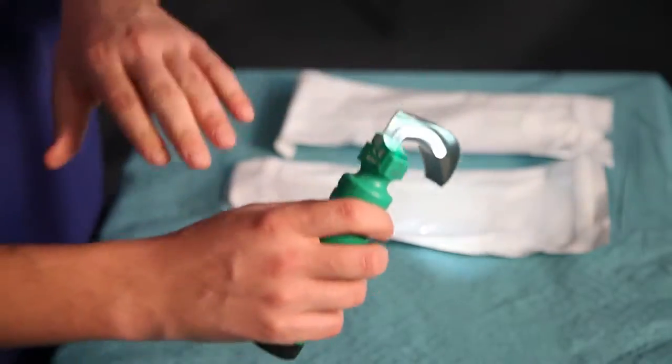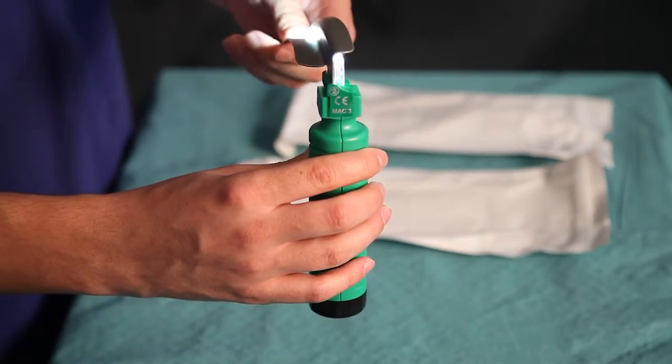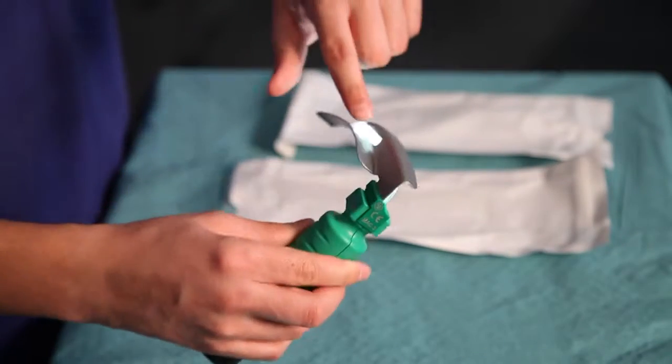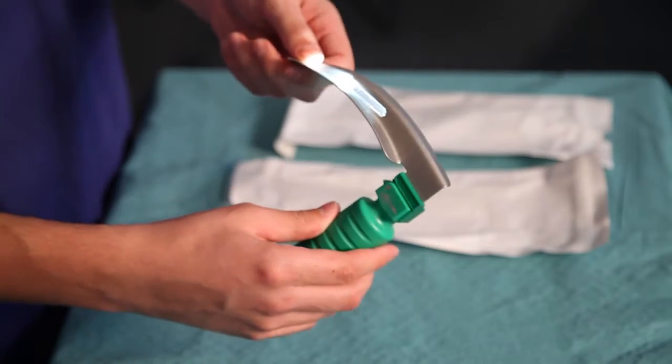The Callisto blade has been redesigned to have a narrow profile. This allows better vision when performing intubation. There's also a new 4mm core which is very strong and gives a really strong light, perfect for what we need.